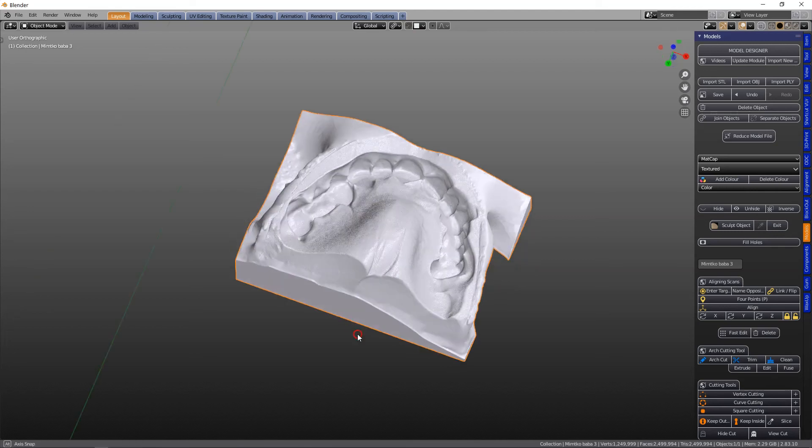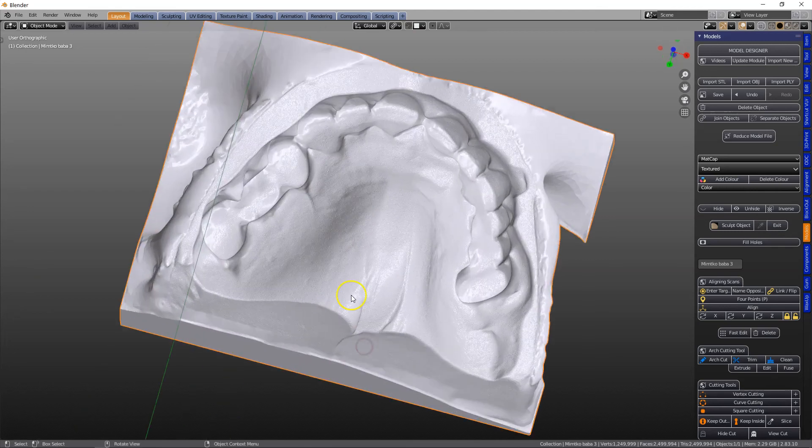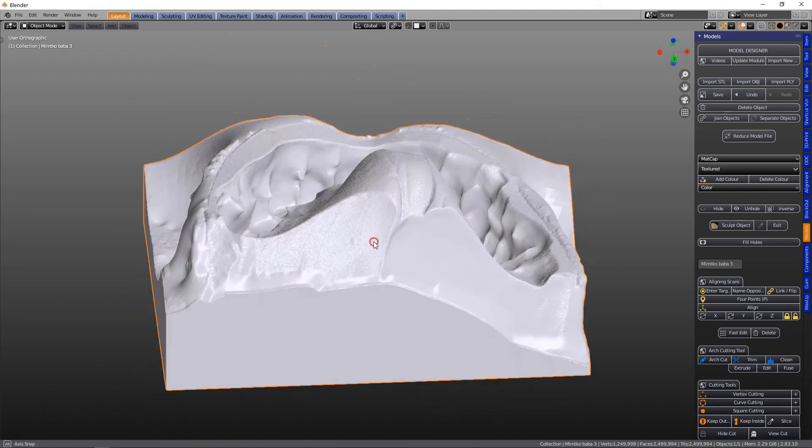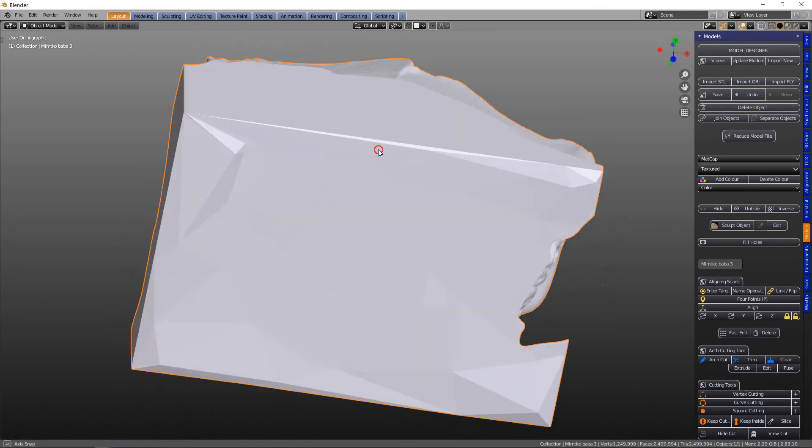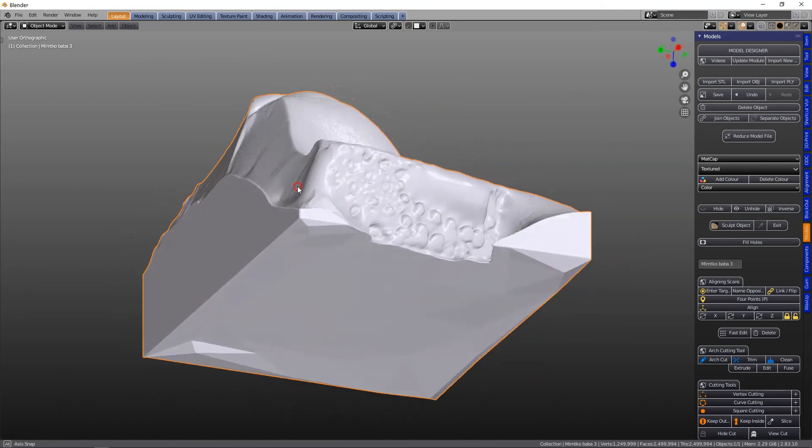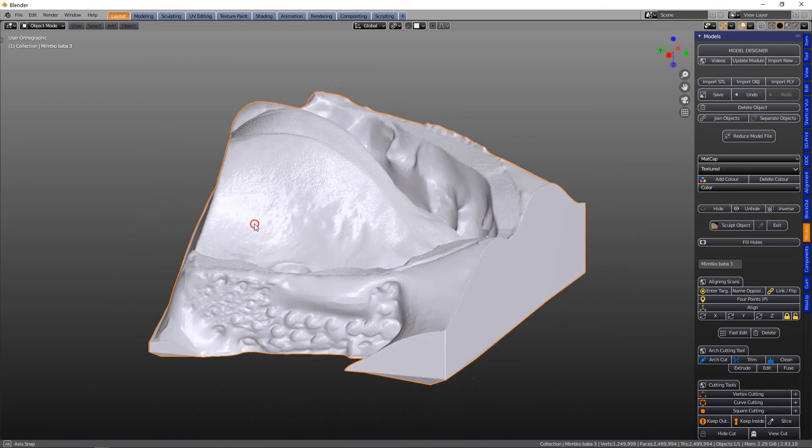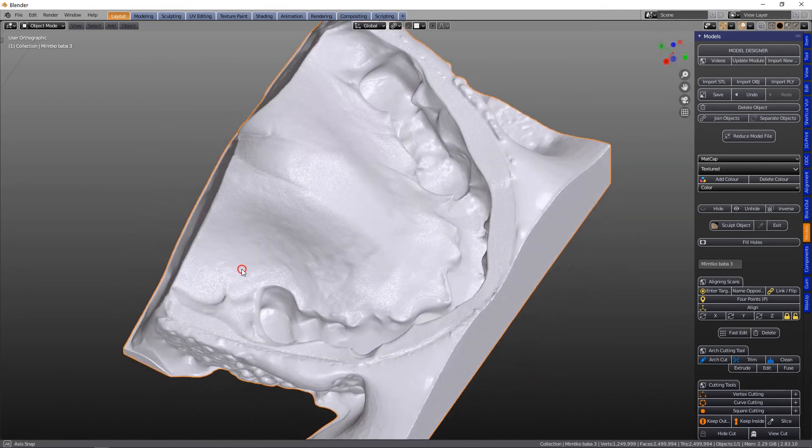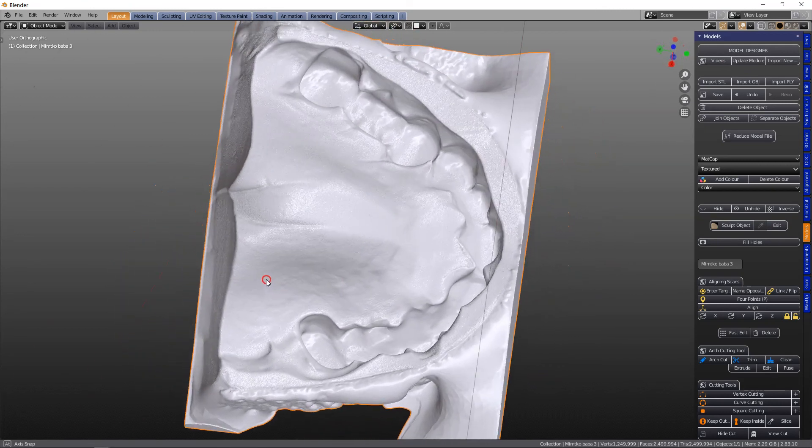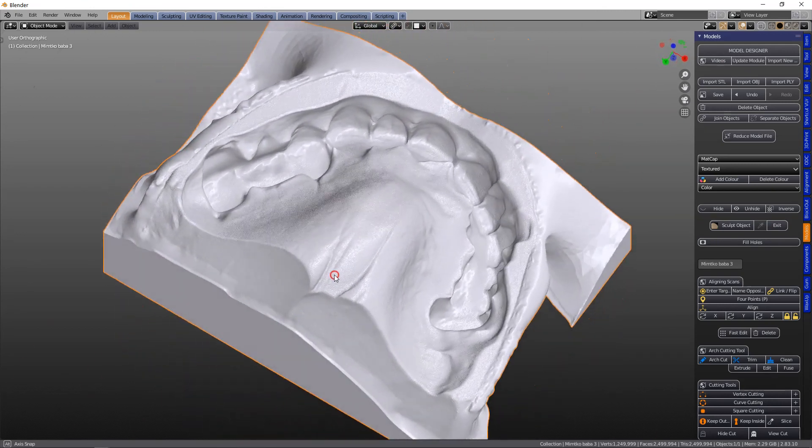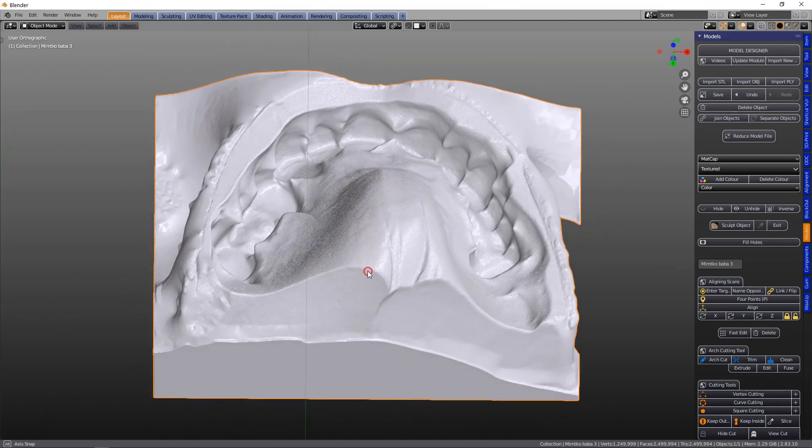We've had a request to make a model from an impression, so I'm going to be using this as a demonstration for other people to learn as well.